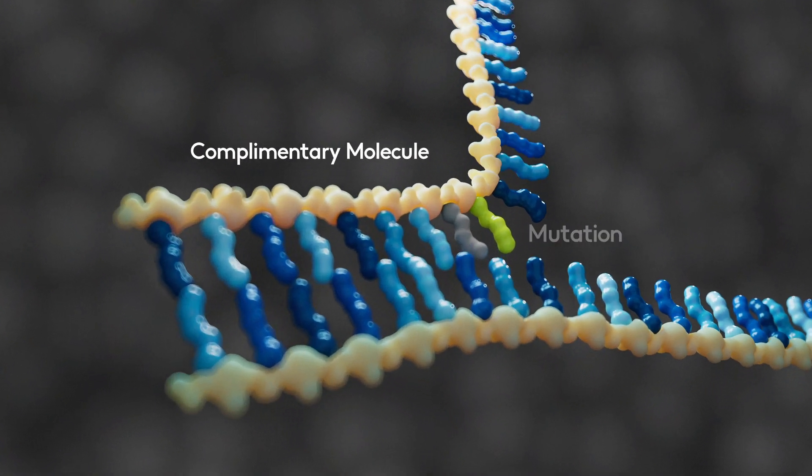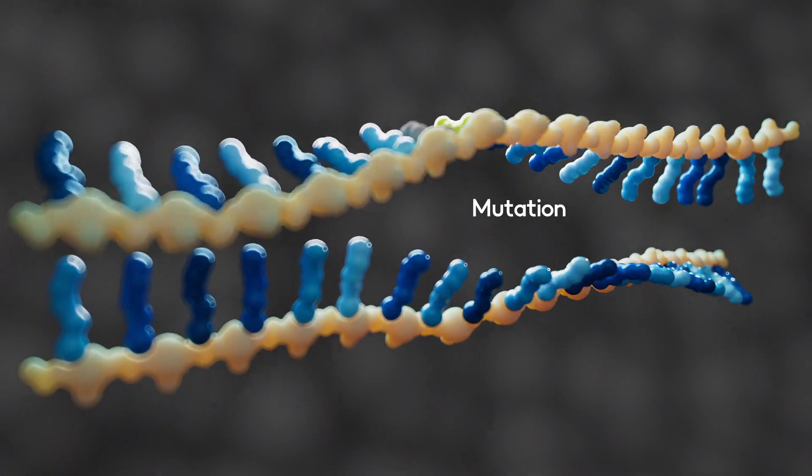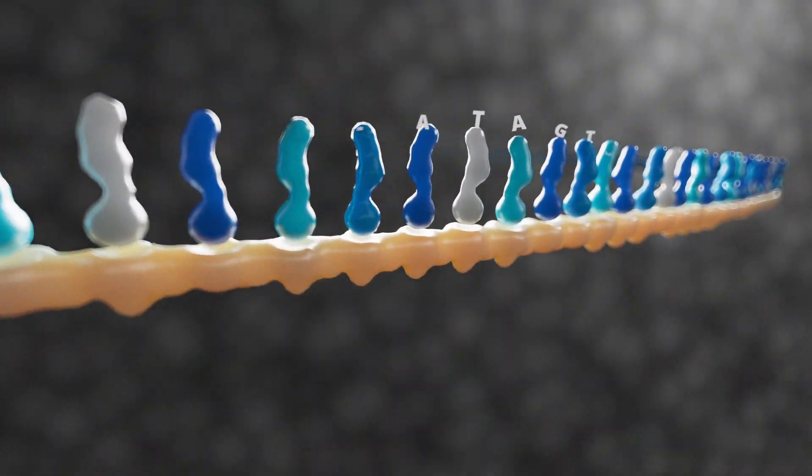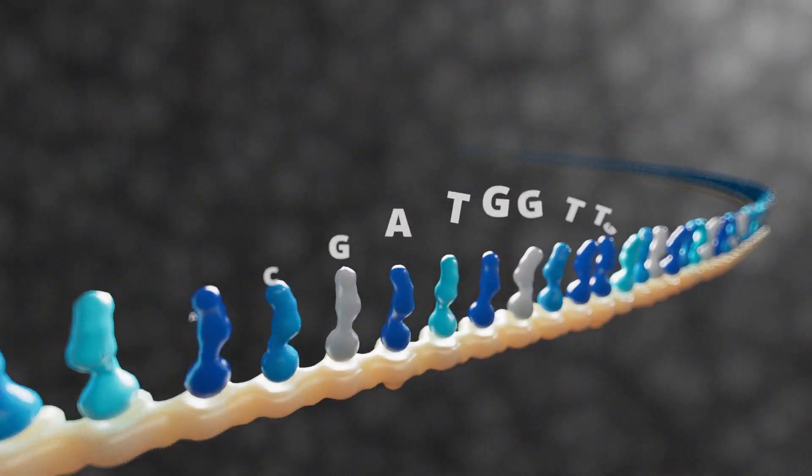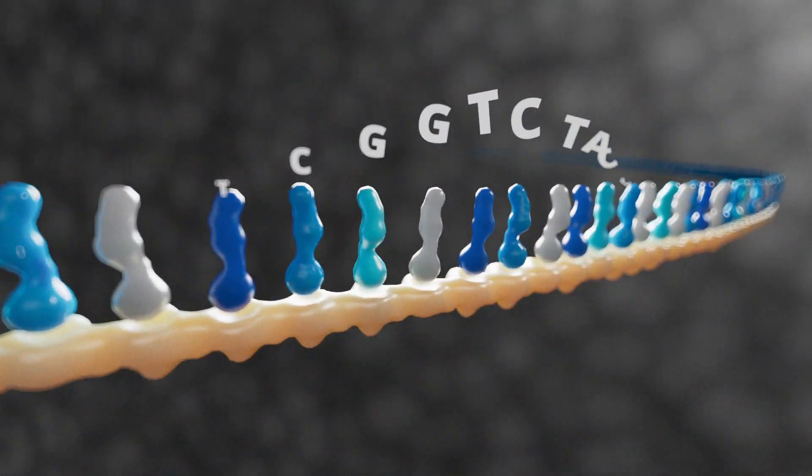While conventional tests target only small regions of the viral genome and can be affected by mutations, ClearDx targets the entire genome for higher resolution that provides more actionable insights beyond positive or negative.